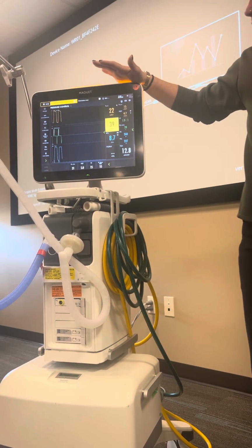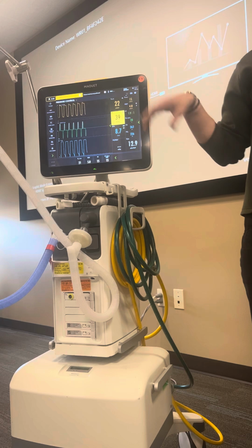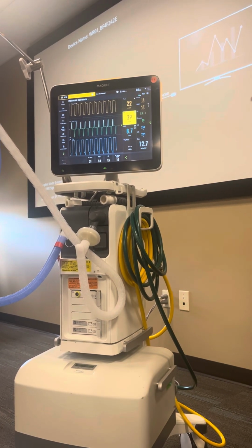And then of course you can hit your recordings here. Right now it's going to record 15 seconds before I hit that button and 15 seconds after, and then it's going to store it in the library. All right, get on up here, start touching things.